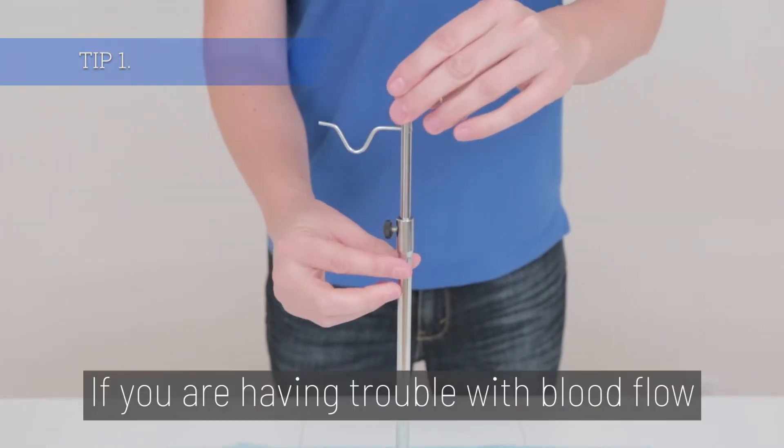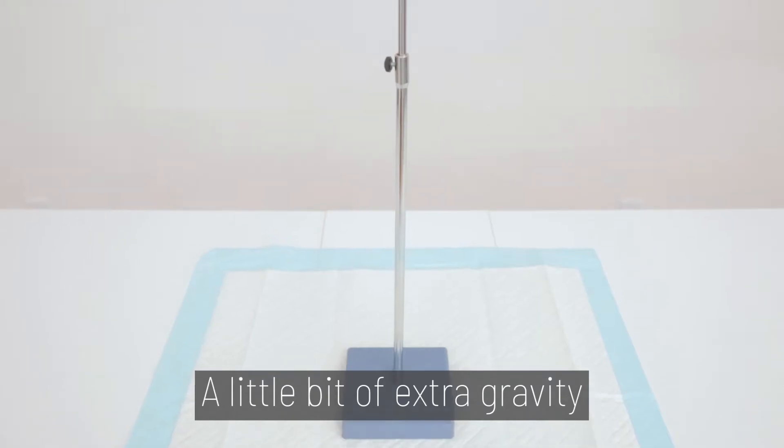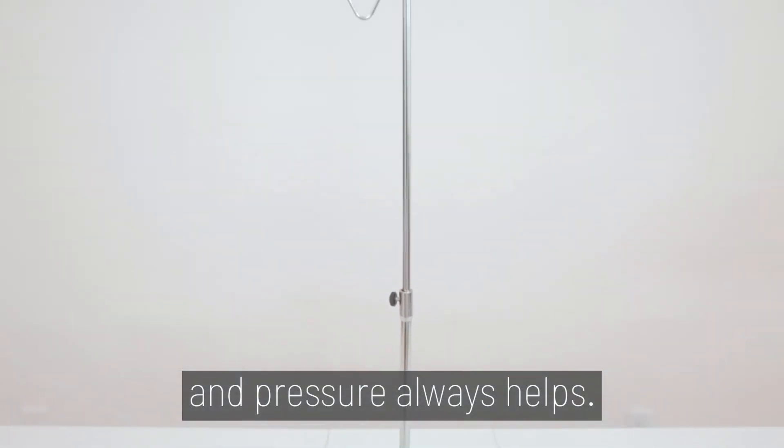Tip 1. If you are having trouble with blood flow or drawing blood, remember to lift the stand higher. A little bit of extra gravity and pressure always helps.